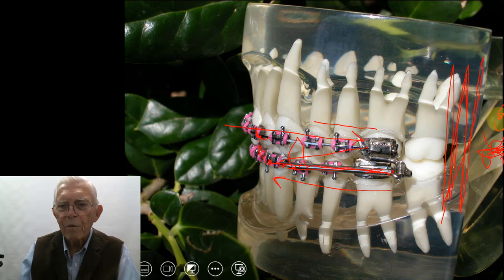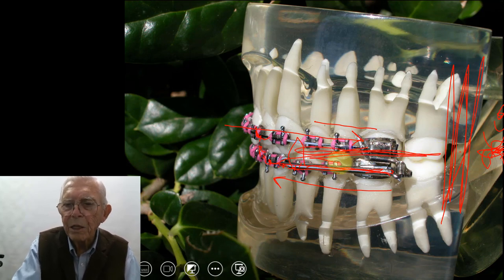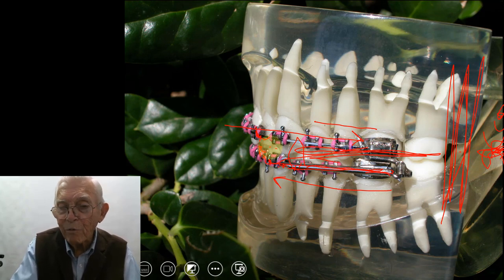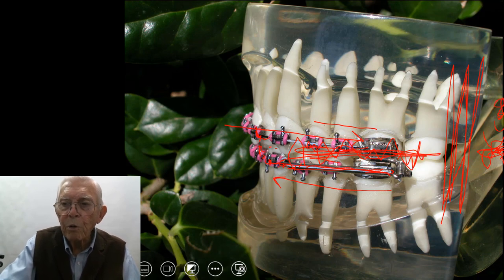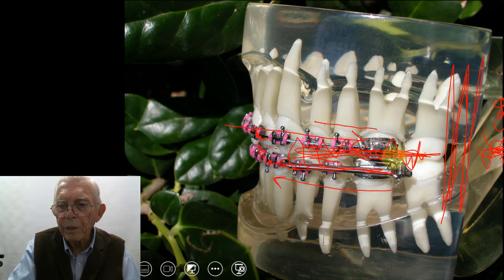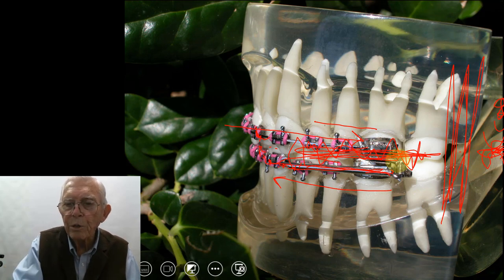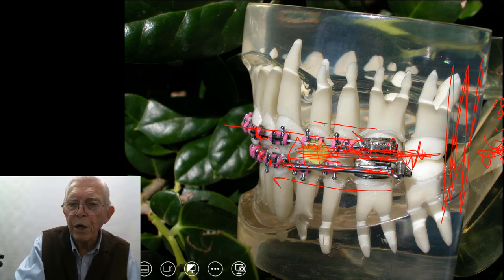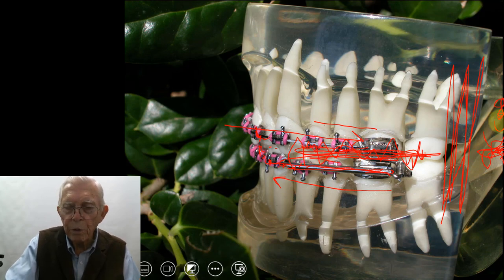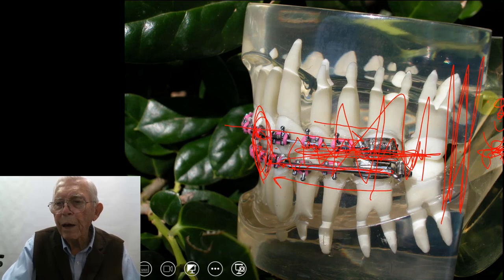So we have to watch out if somebody starts hurting back there. What you could do is when you bring them forward, come in and put some acrylic cover over the back teeth, so that when you're biting forward, your teeth would have something where they would meet in this area, and it would take the load off the joint back here. If you move them out here and put some soft acrylic just on the occlusal surface of the teeth and bite down on that, then smooth out everything except where the points of the teeth touch, it wouldn't bother the joint when you close, because the load of the muscle force would be back here rather than in the anterior part and back on the joint.